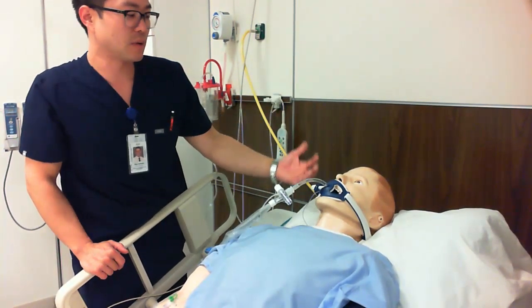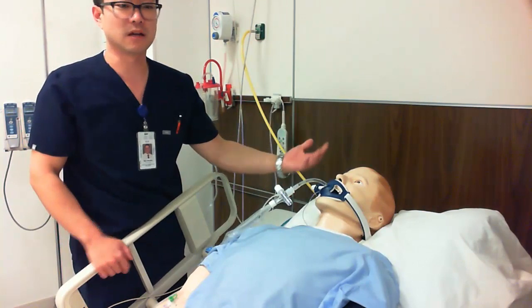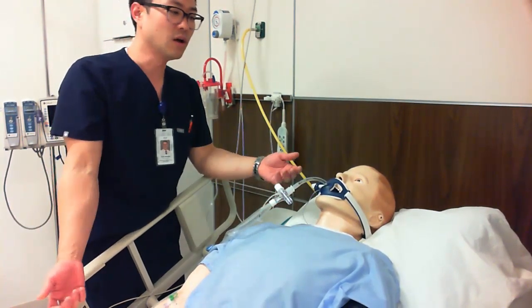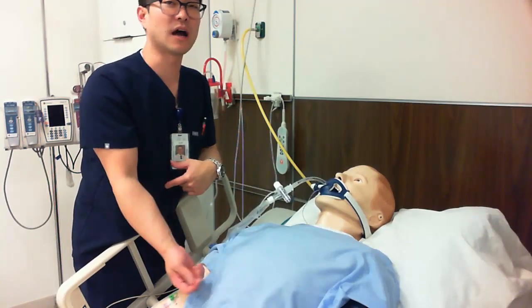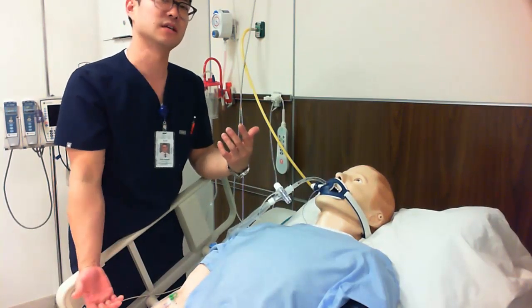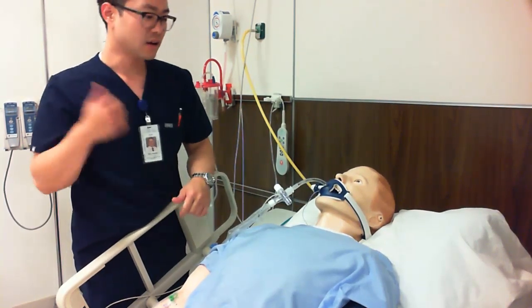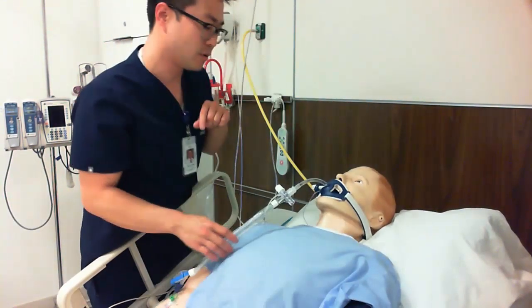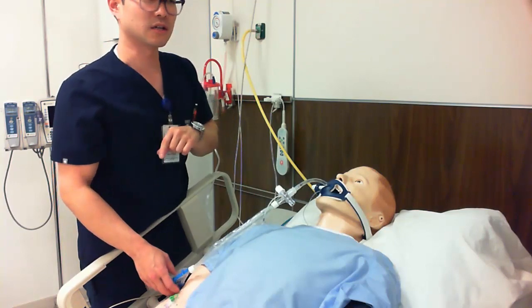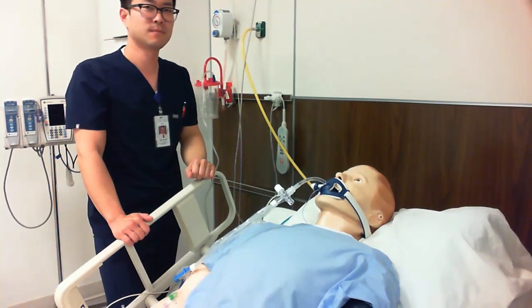So in the event that my patient has trouble, let's say they get extubated, they pull it out by themselves, well, I already know the size of the endotracheal tube, so if I have to get a new one, I can go grab that in the case of an emergency, and I'm all safe. All right, great. So we have that out of the way. One thing I also want to review with you guys is inline suctioning. So let's try that in one sec.